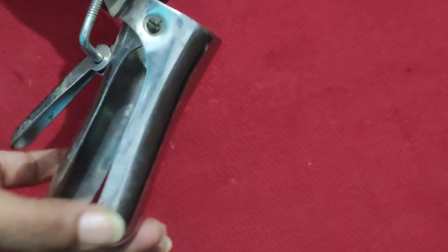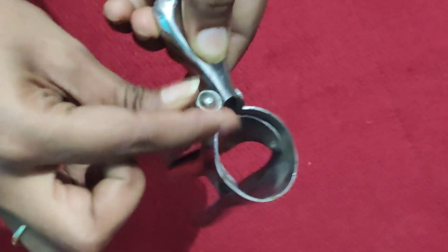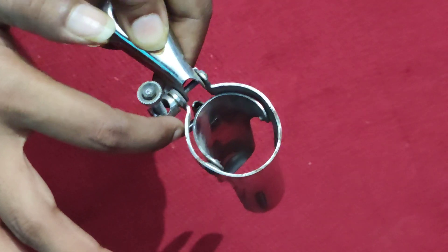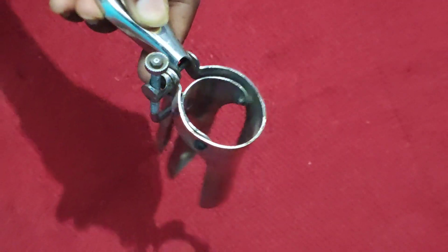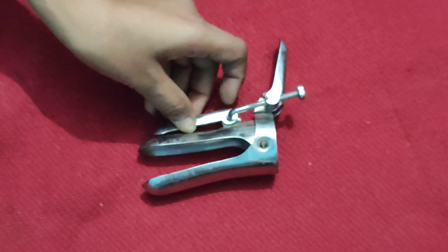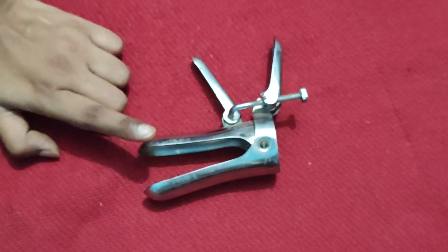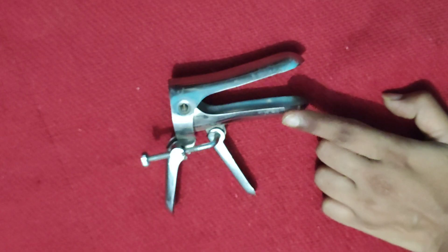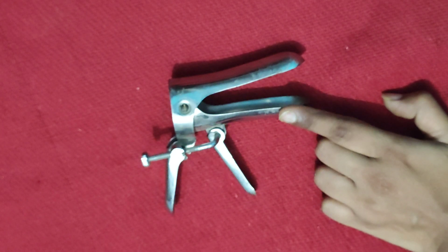So this is having an anterior and posterior blade, a screw, and a proximal rim. The uses of this instrument include: routine per speculum examination of the cervix, and insertion or removal of IUCD — intrauterine contraceptive devices.